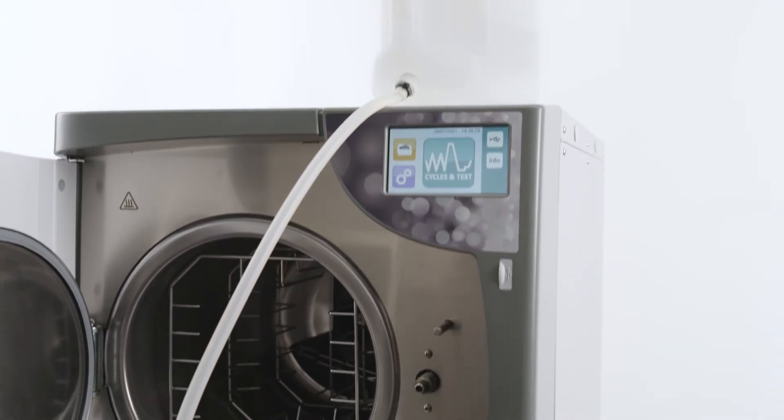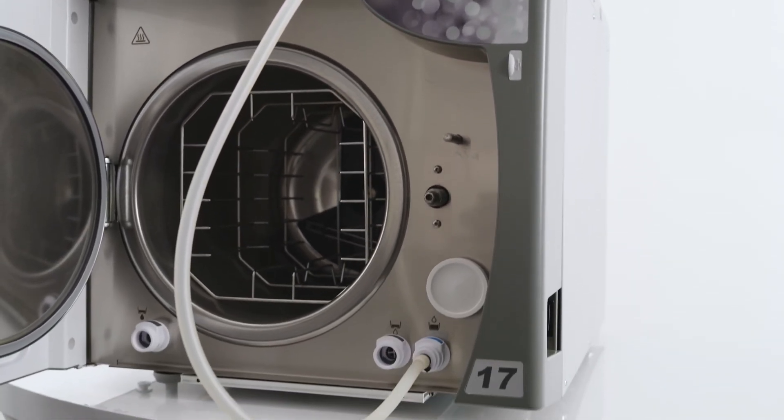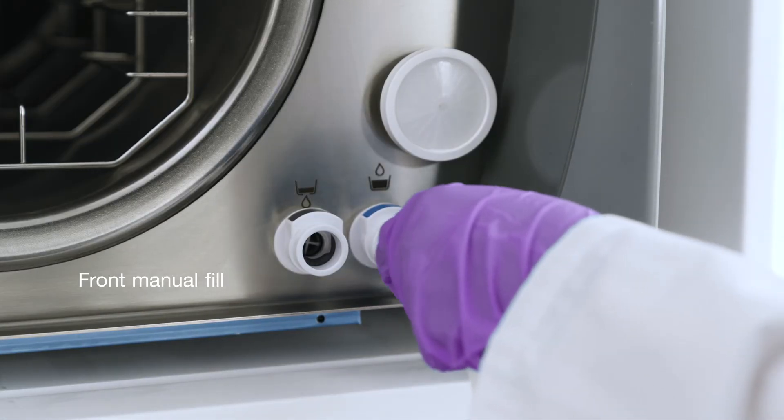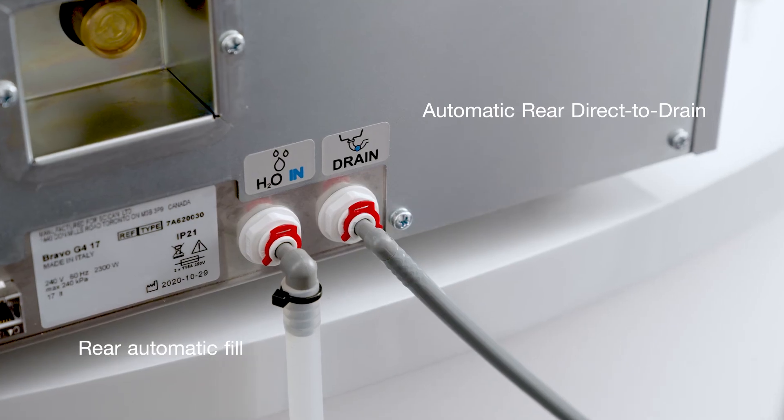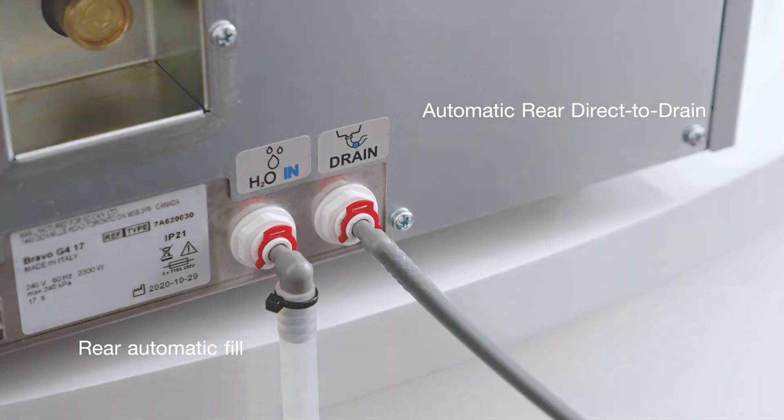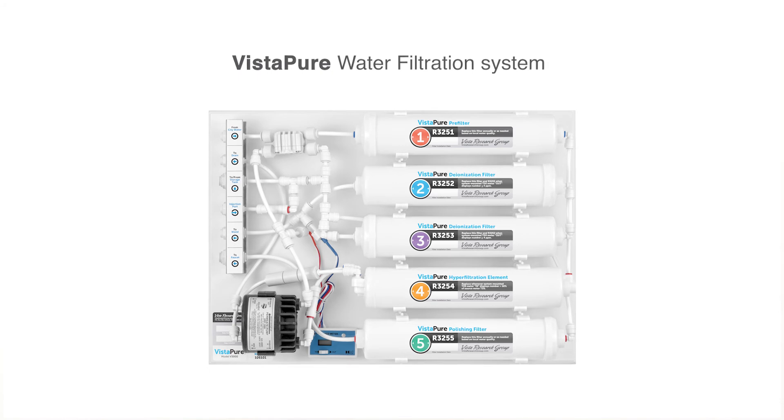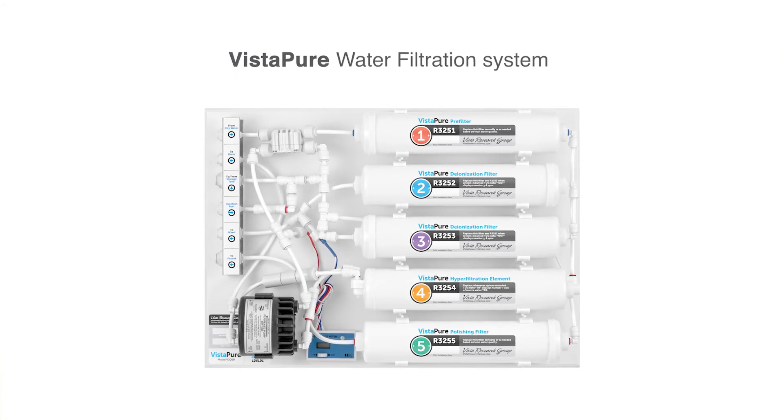Bravo G4 offers numerous filling and draining options, including manual top and front filling, and rear ports for drainage and automatic filling. For optimal efficiency, systems like the Vistapure water filtration system can be easily connected.